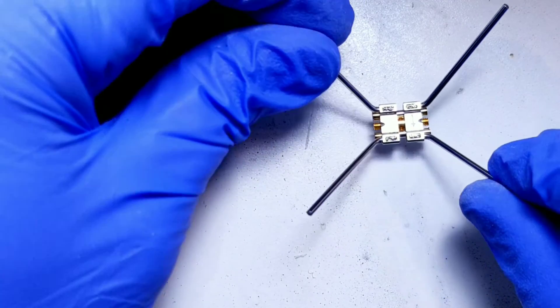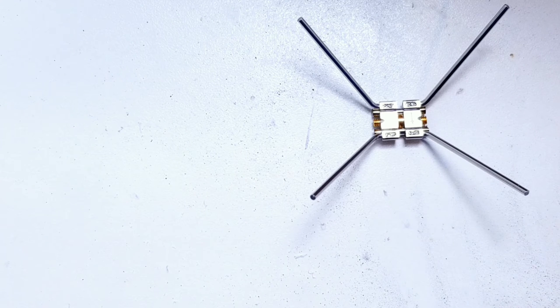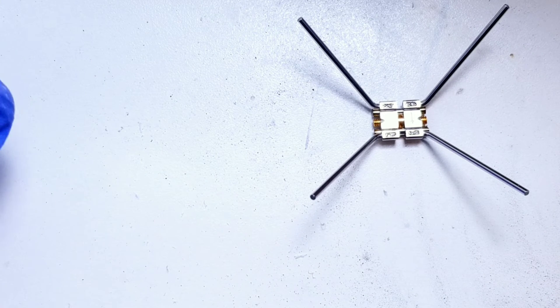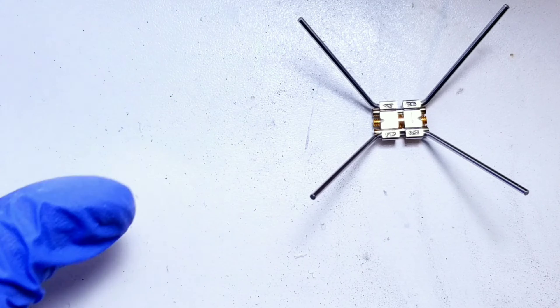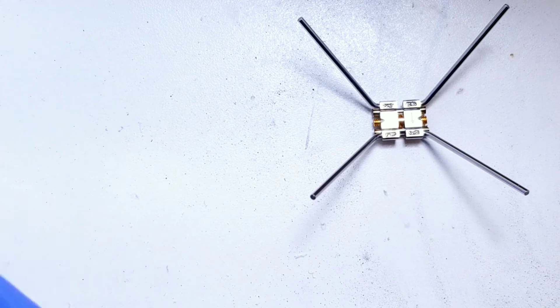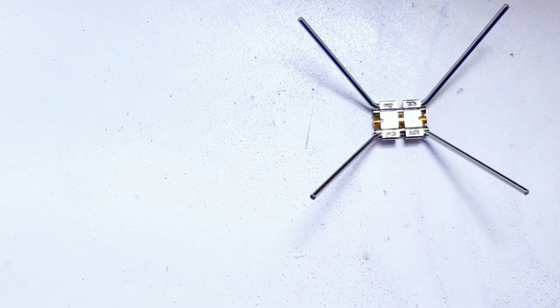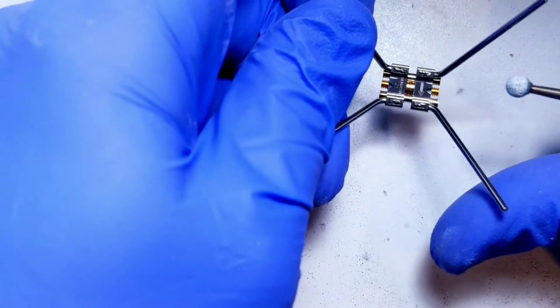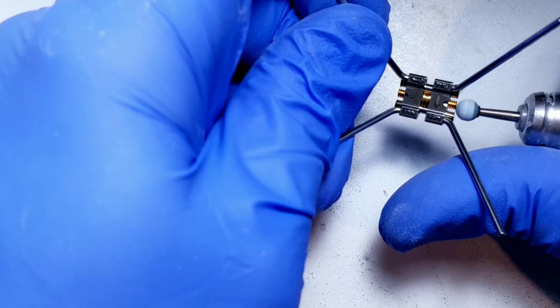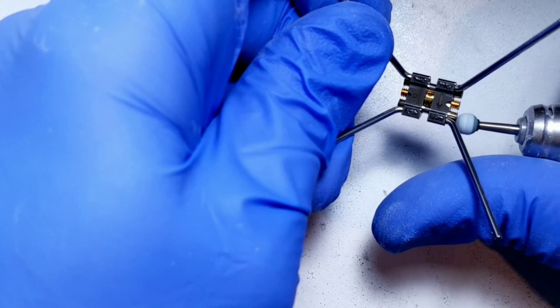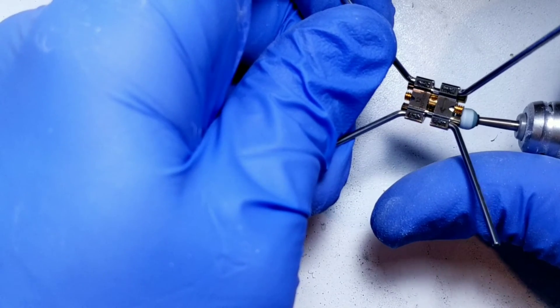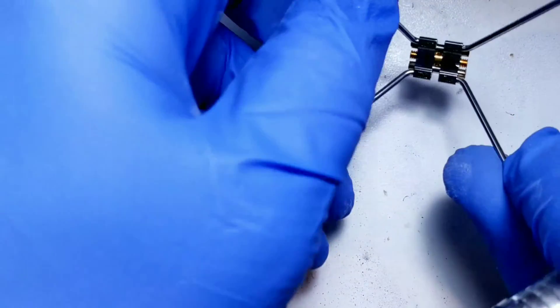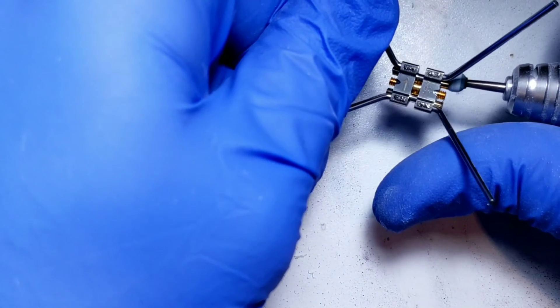Now here I made a 12 millimeter screw into a 10 millimeter screw. In this step, I'll use a stone wheel of some sort to round off the very sharp edges I just created on the expander spindles. If you just round them off real nice and easy, it feels perfectly normal against the tongue. And when I pumice and polish when I'm finished with the appliance, I do the same thing. I run some pumice and polish over those parts that were trimmed off to make sure that they're perfectly smooth.